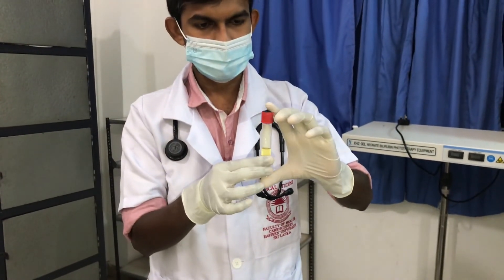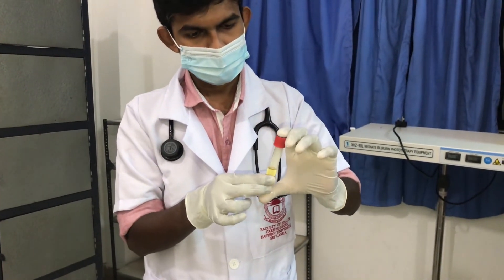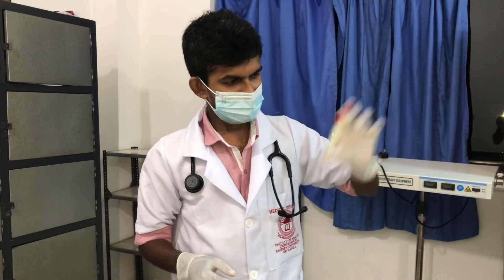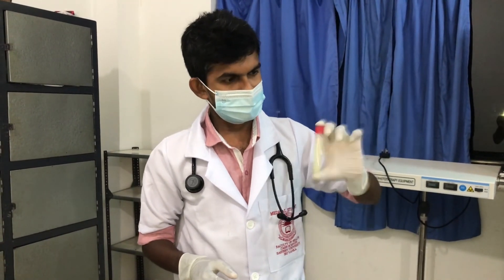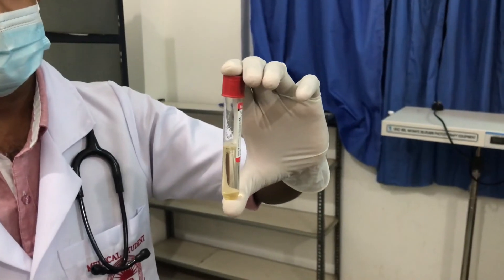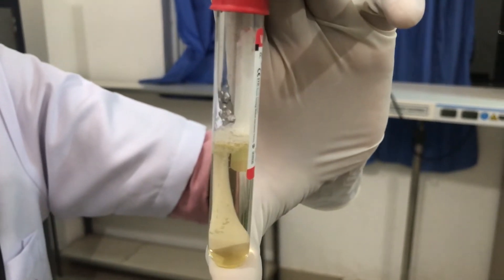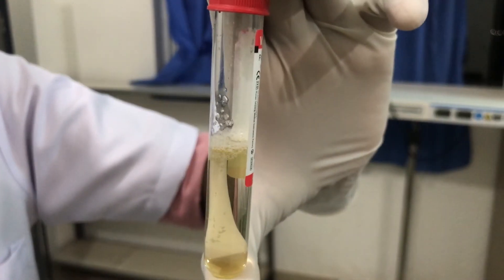This is a normal person's urine. At the end of the test, we didn't get any foam.